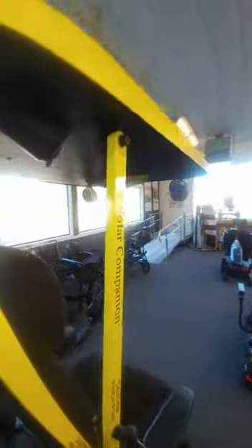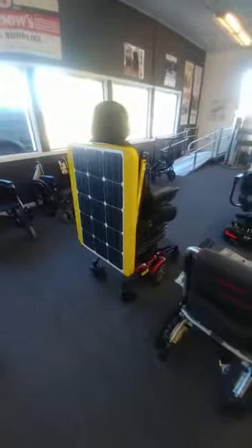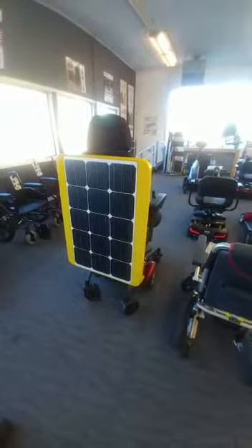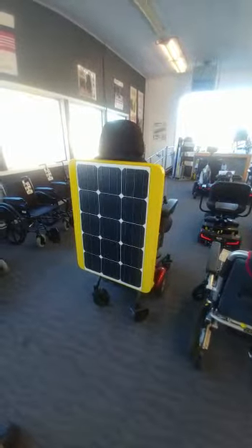Keeping those batteries fully charged. Under here you'll notice we have mirrors and a power port for cell phone, radio, or whatever else you like. With a simple pull of these two pins, it folds down right behind the chair for easy transport. Whether it's up or down, it's still fully charging, keeping those batteries fully charged all the time so you can use your options whenever you desire.